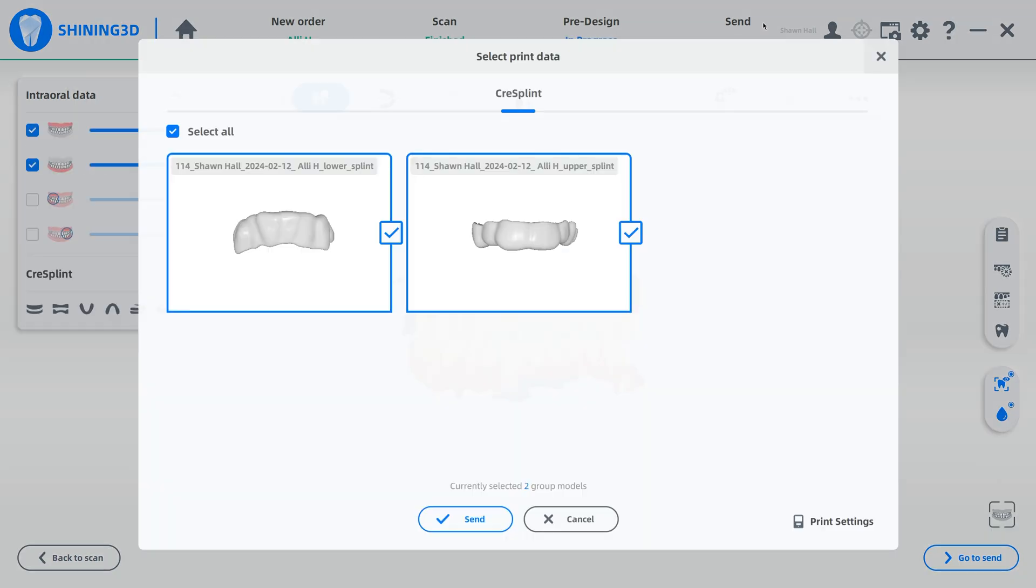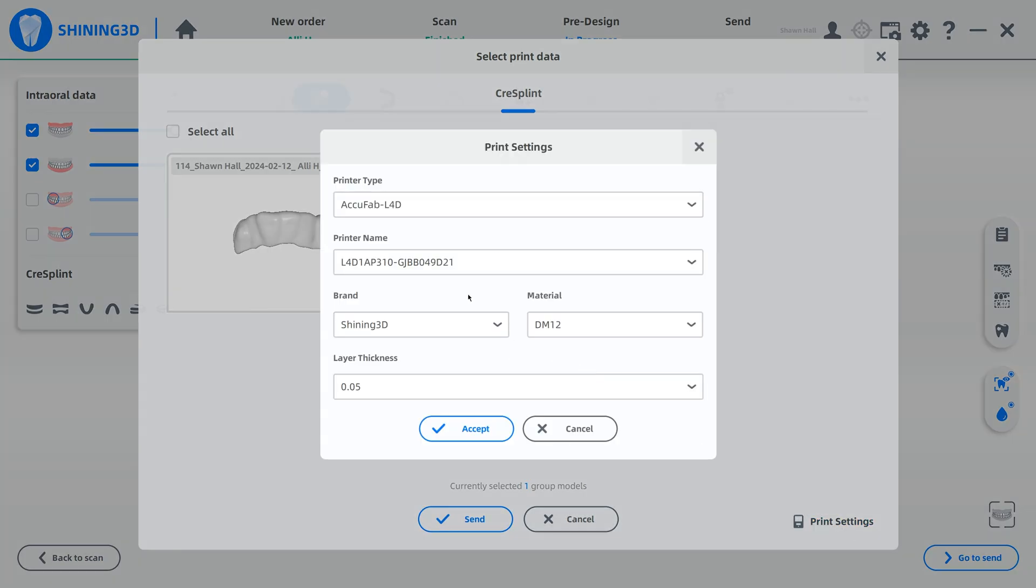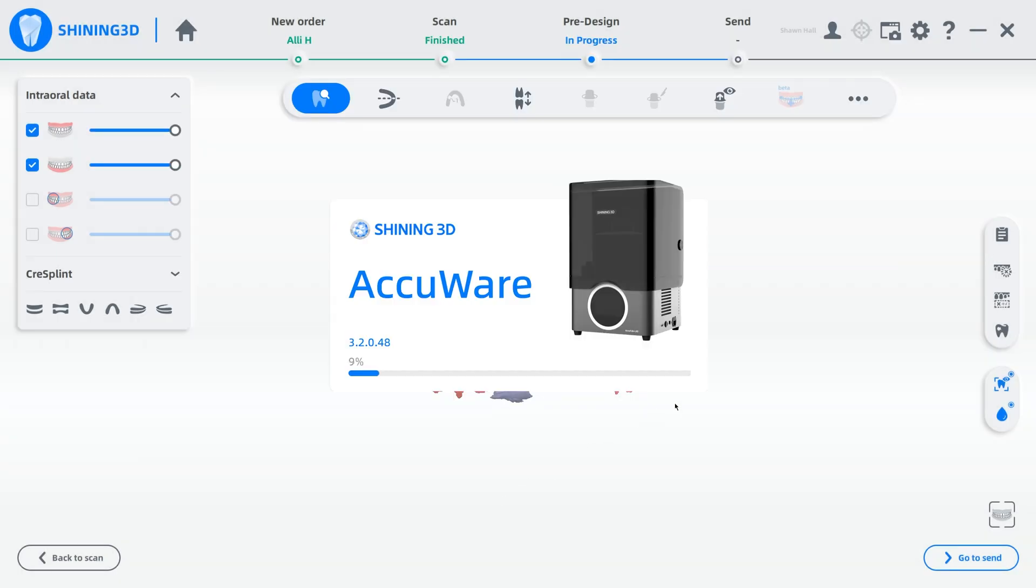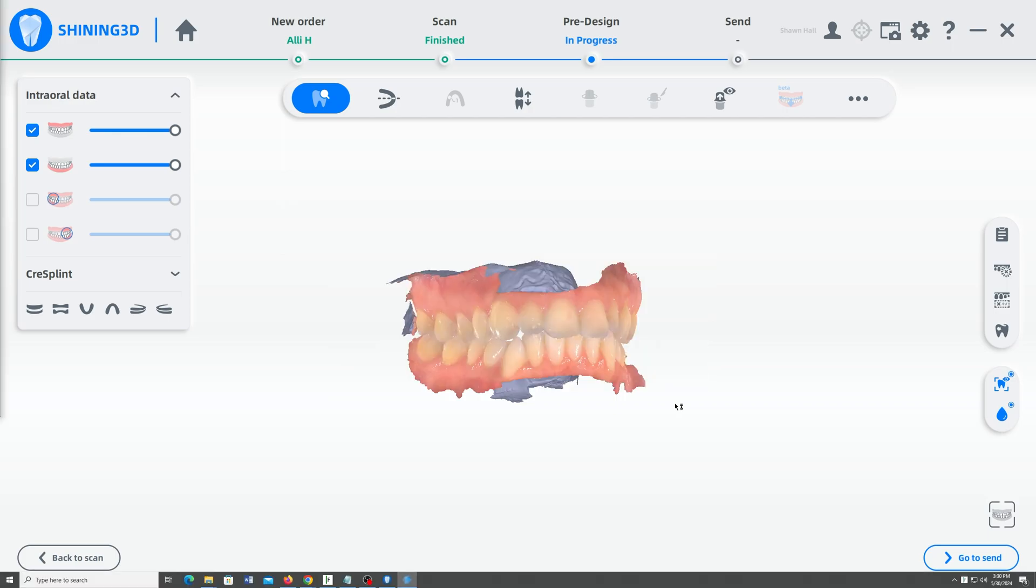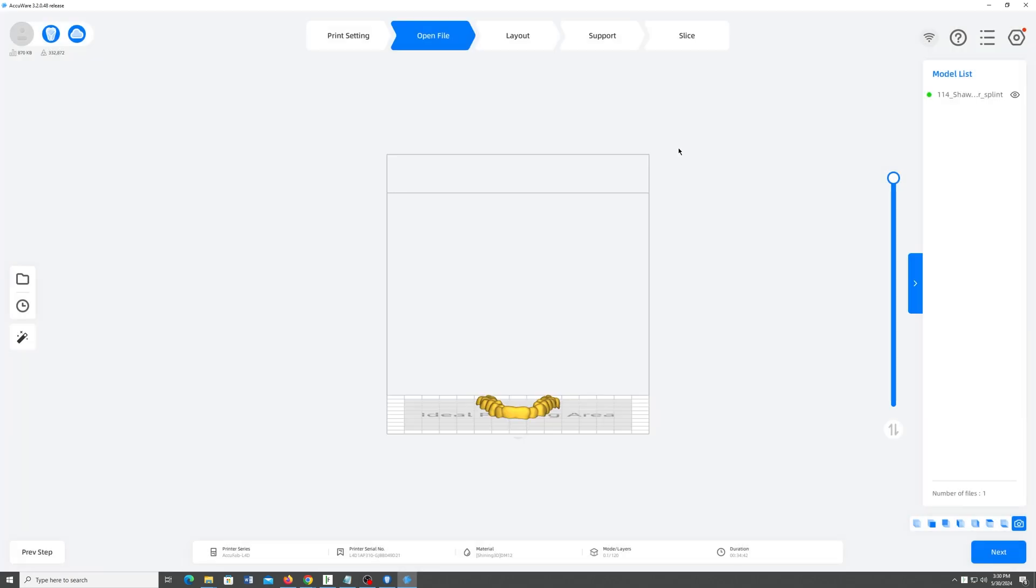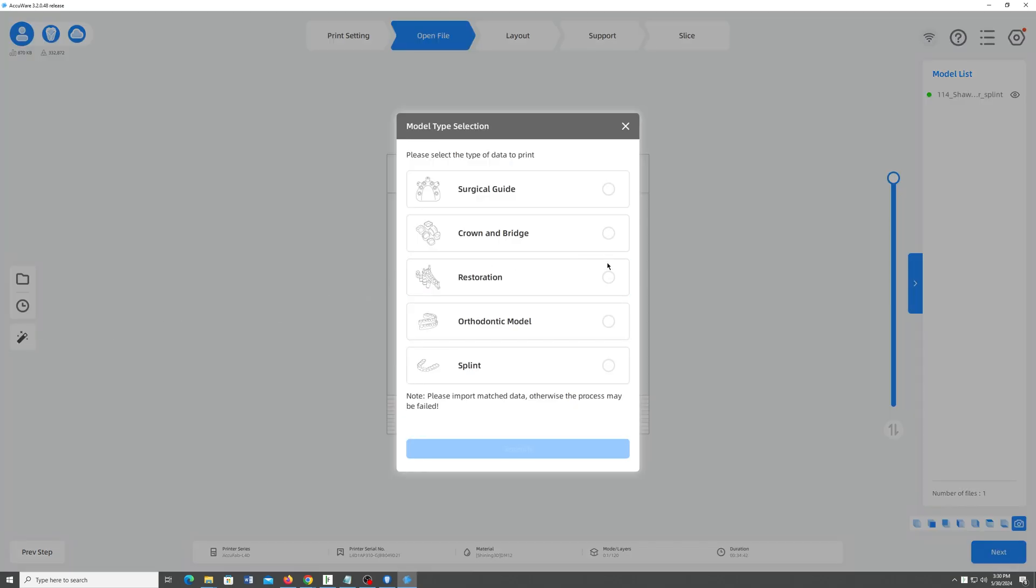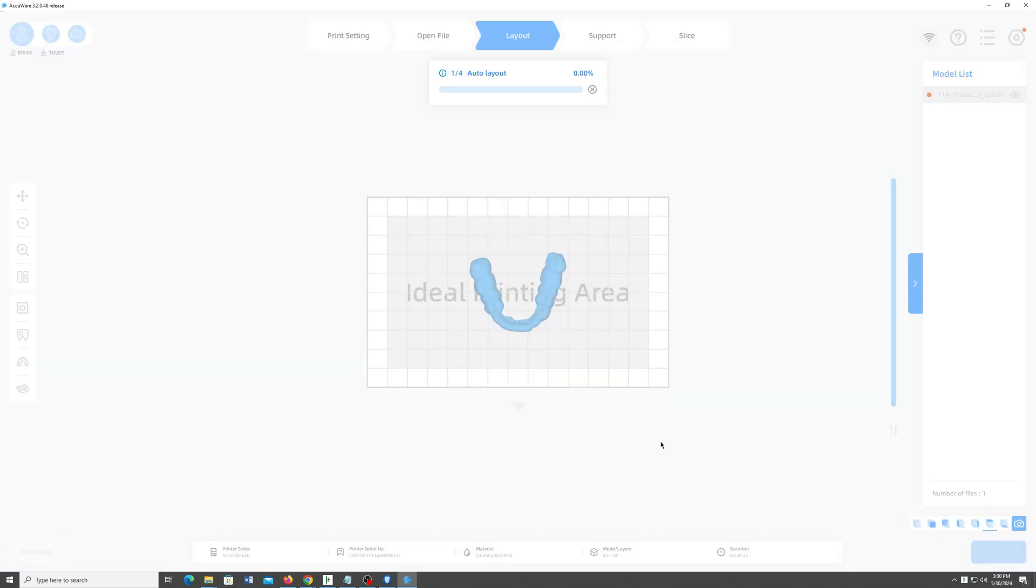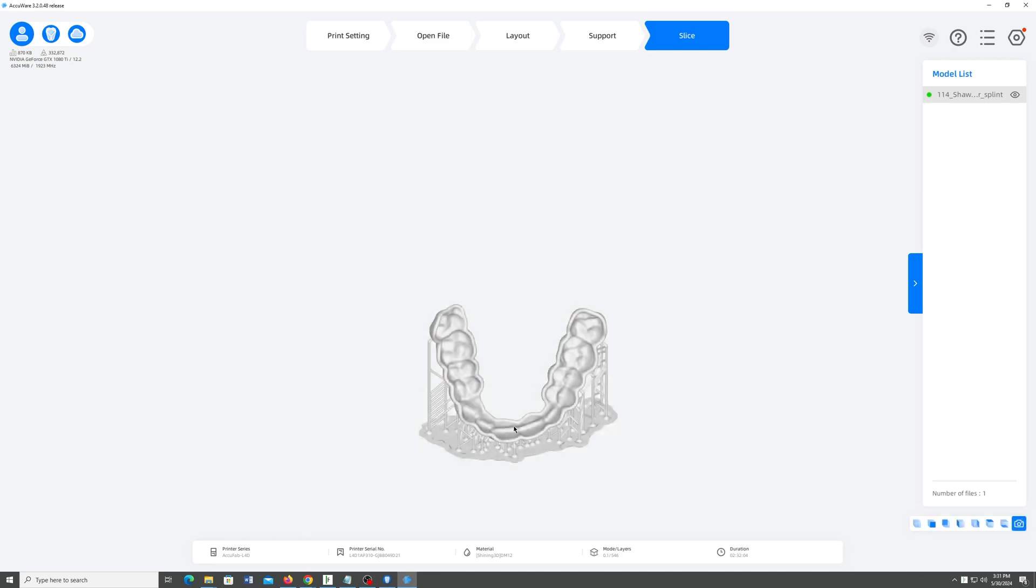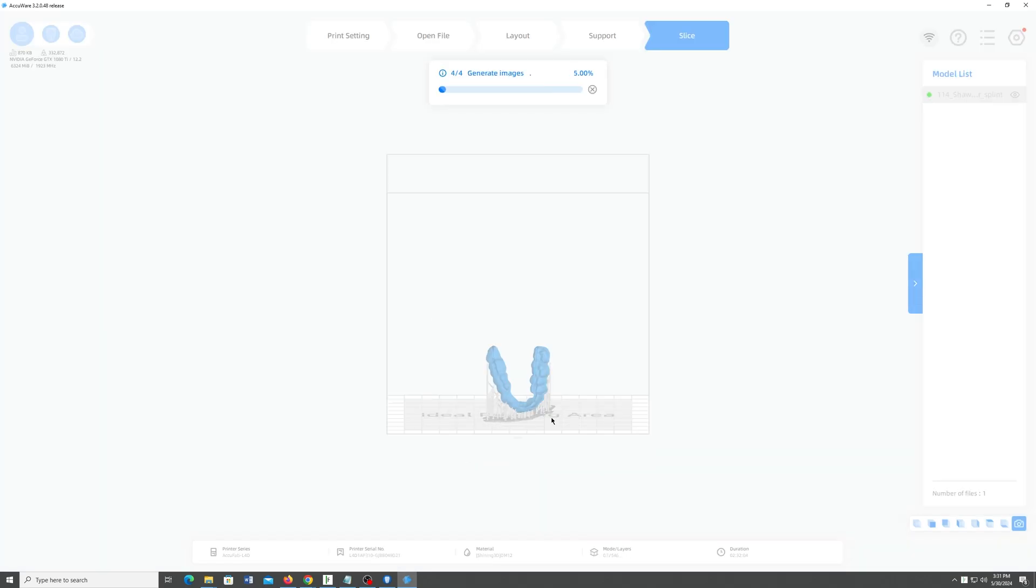So you can see, we can just send this right off. We can choose which one we want. Like, I'm not going to send the lower splint. And I can send this. I can choose all my resins right here. Obviously, I would be printing this with Keystone Soft Splint or the new Splint material from Shining. But you want to choose your material before you send it over. It's going to open up AccuWear. I'll do these updates later. And there you go. Loaded it in here. And then you can just hit the magic wand. And choose Splint. And hit Generate. There you go. Builds all your bridges. Builds a nice flat platform. It's ready to rock and roll. You can just hit Print. And you're good to go.